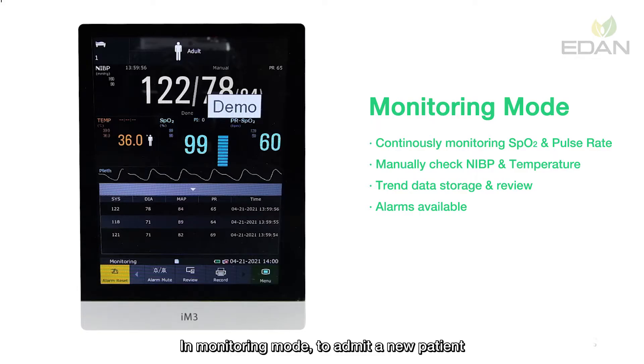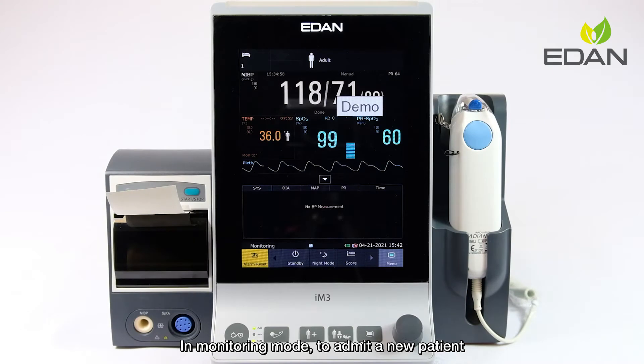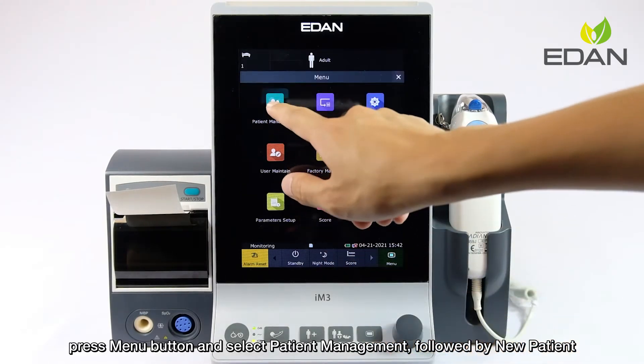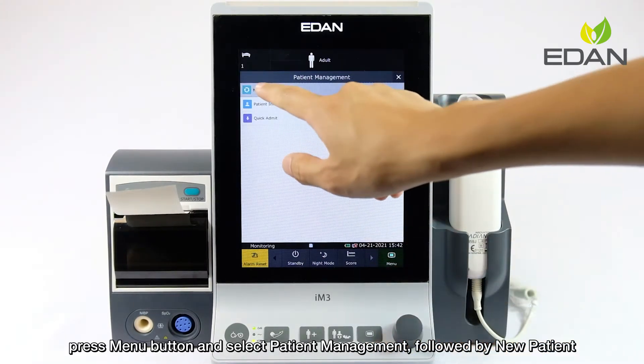In monitoring mode, to admit a new patient, press the menu button and select patient management, followed by new patient.